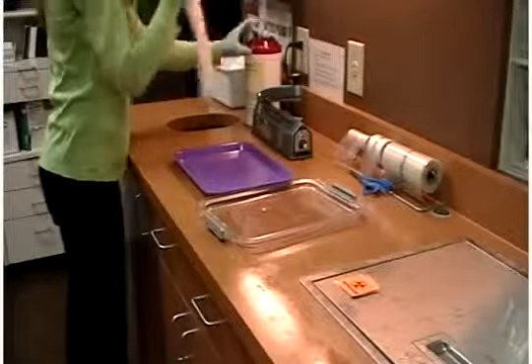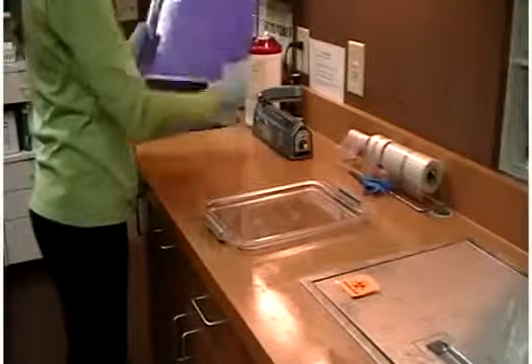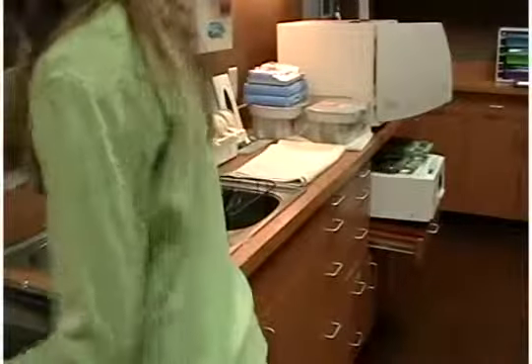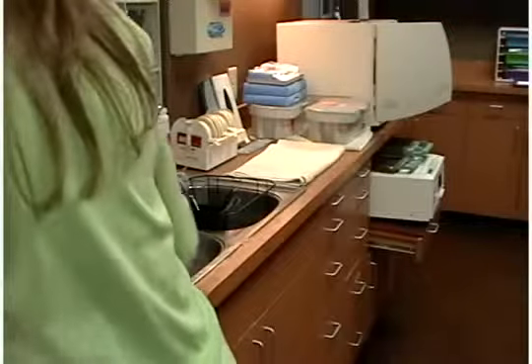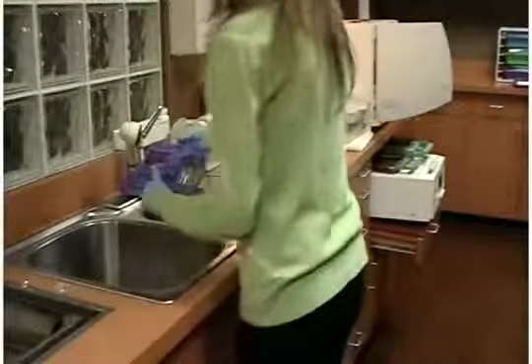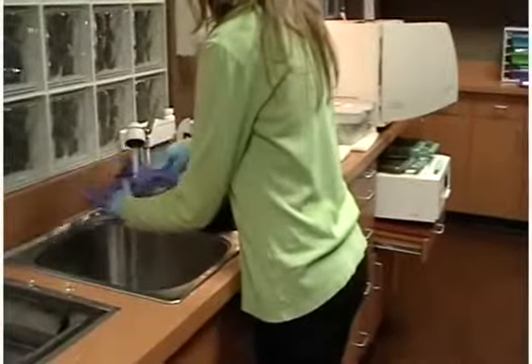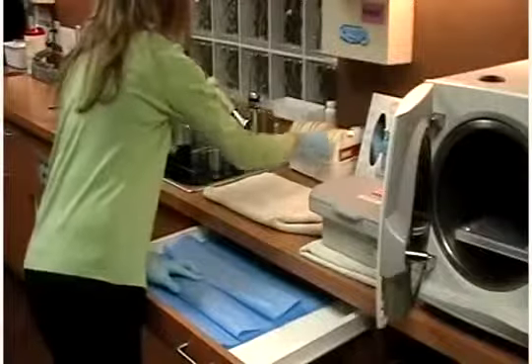While these items are being cleaned, surface disinfect your tray and locking cover. Then move these items over to the clean side of central sterilization. Remove the organizers from the ultrasonic or instrument washer. If you used an ultrasonic for your cleaning method, you will want to rinse your items with water and then allow them to dry completely. If you used an instrument washer, you can remove your items and allow them to dry, for there is no need for rinsing.